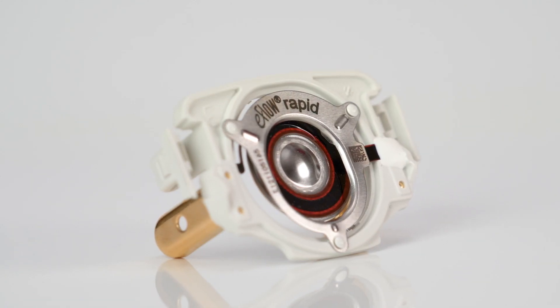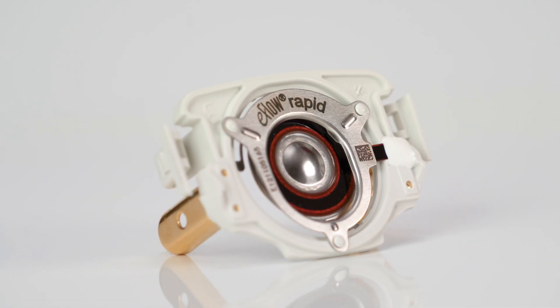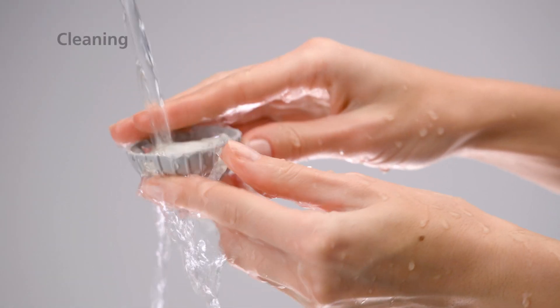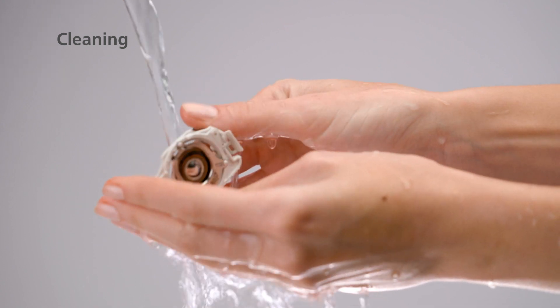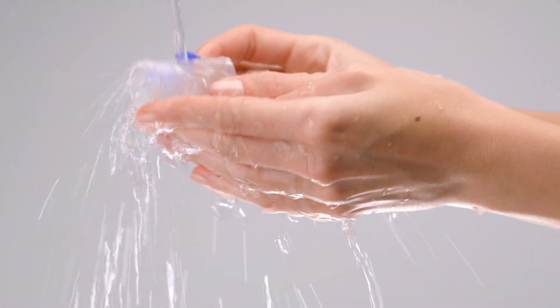Do not touch the membrane at the center of the aerosol head. Rinse all parts of the nebulizer handset and the aerosol head for five seconds under warm running tap water.